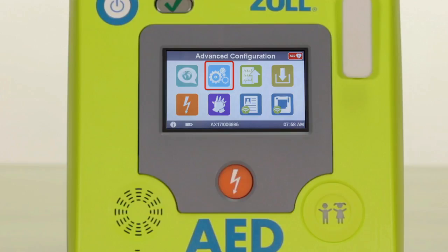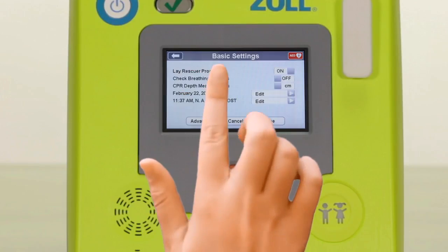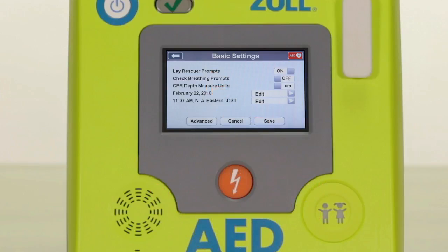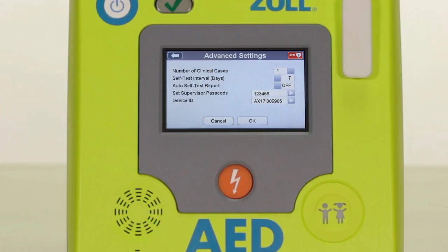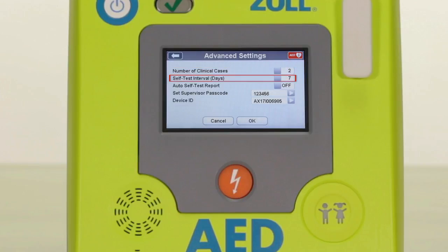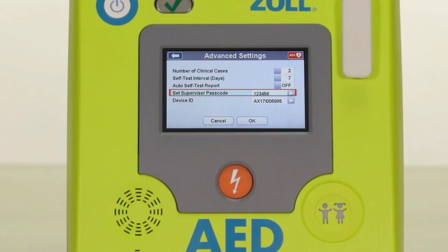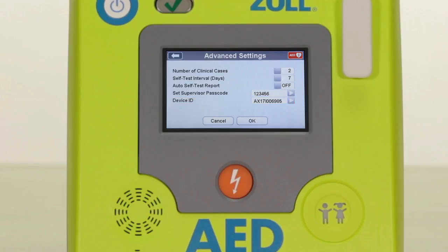The blue gear icon is similar to the item that appeared on the previous basic configuration screen. However, when you open this setting screen, you will notice there are advanced configuration settings that can now be accessed at the bottom left of the screen. In this screen, you can select the number of clinical case files you want the AED3 to store, how frequently you would like automatic self-tests done, whether you want to transmit these self-test reports to your program management platform over Wi-Fi, if you would like to change your password, and how you want the AED to be identified in case review or code review. Make your desired changes and select save.